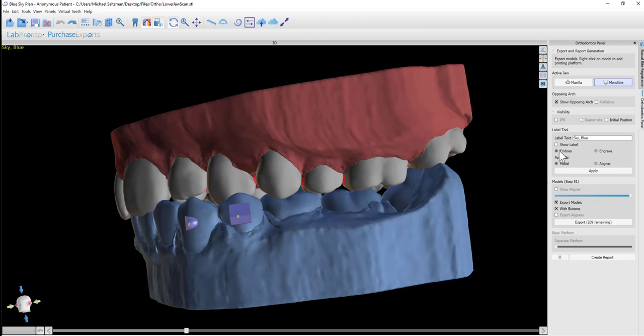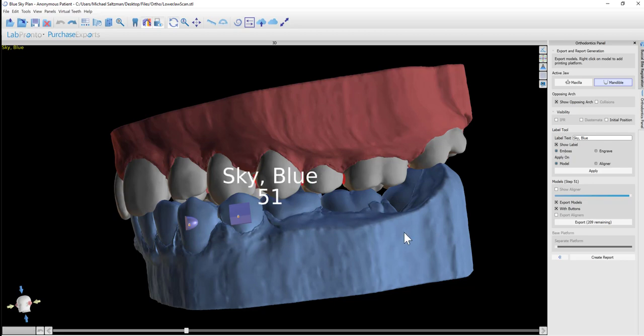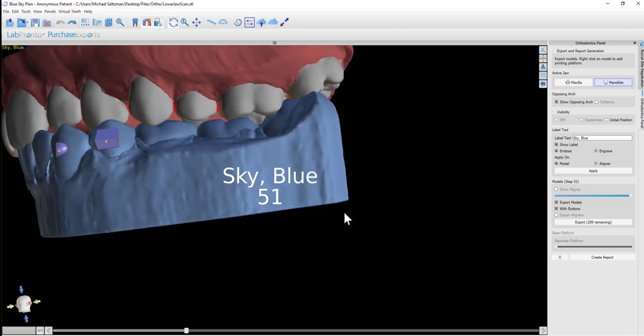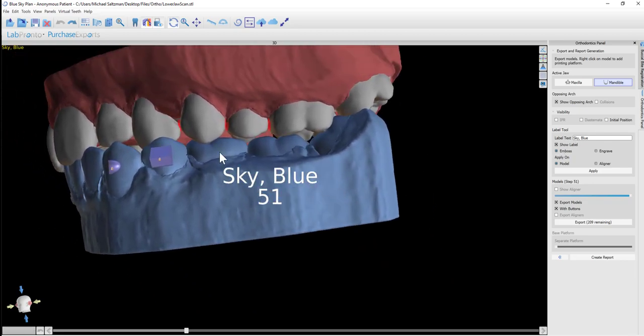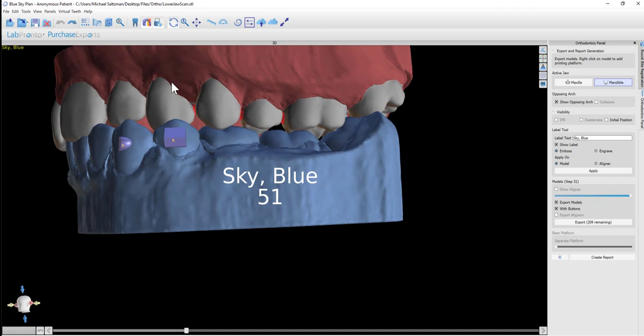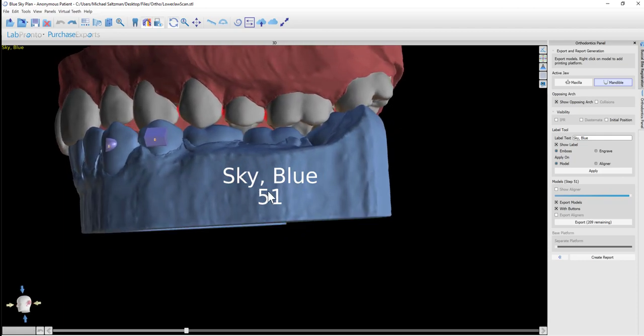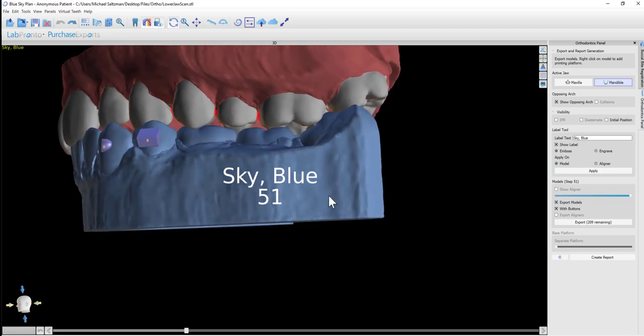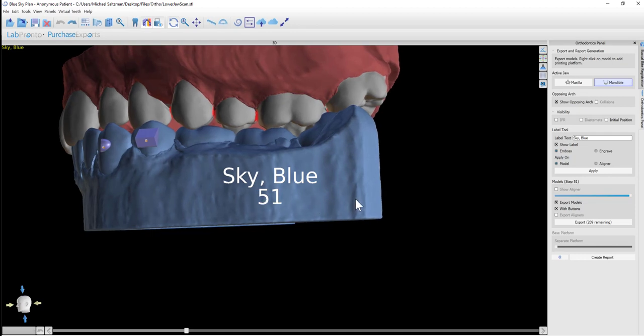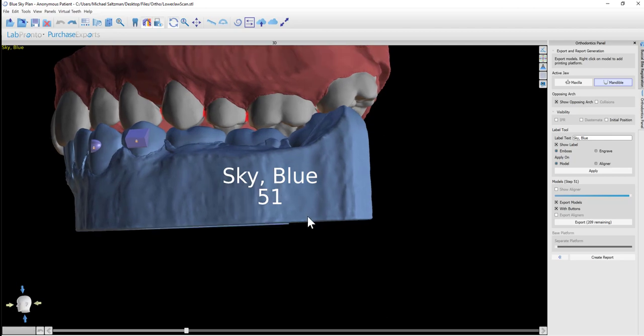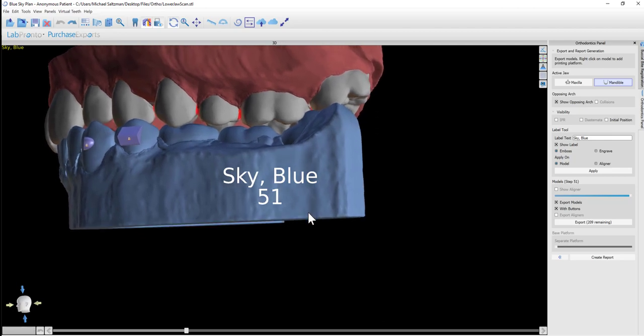Let's take a look at these two things. First of all, we have our label text. If you enter a unique identifier at the beginning of the process, it shows up here. We could click the Show Label checkbox and we see the text showing up on the screen. What we want to do is position the text with the number—the step number—in the location on a single model where we would like it to be placed.